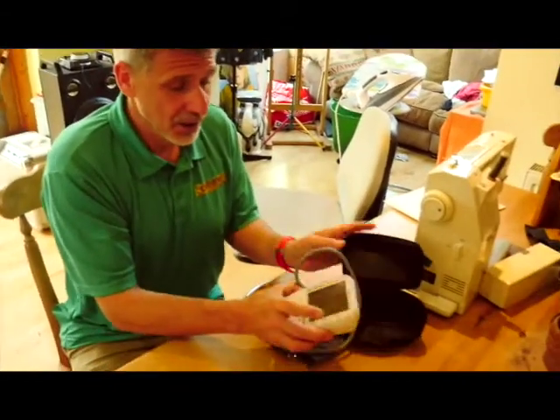Right then, there's a couple of things. You'll have bought a machine and ideally it's the one that goes above your elbow. We're not that keen on the ones around the wrist.